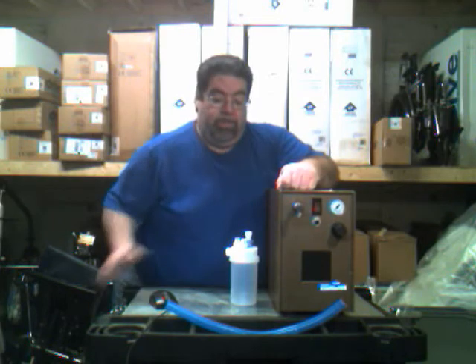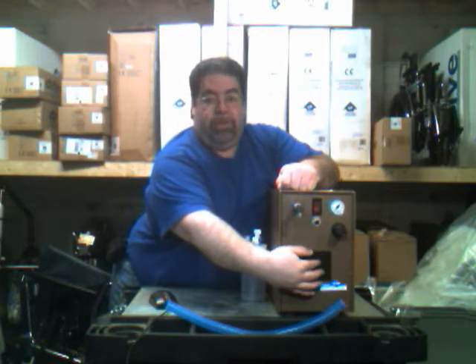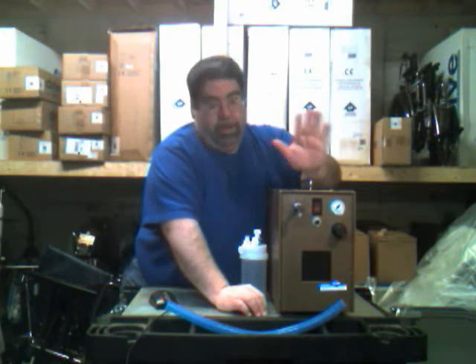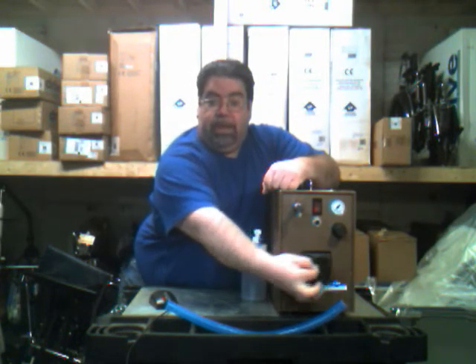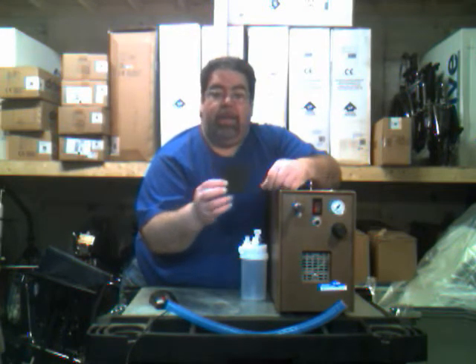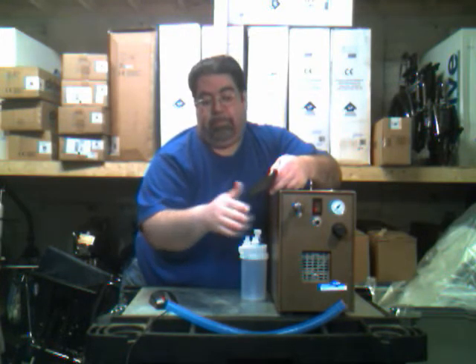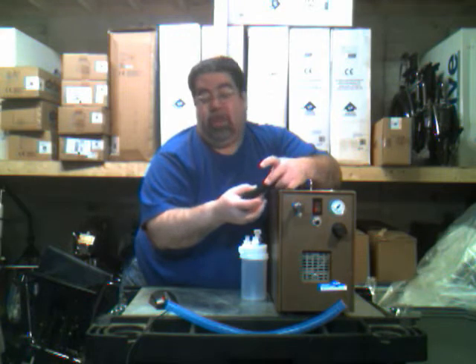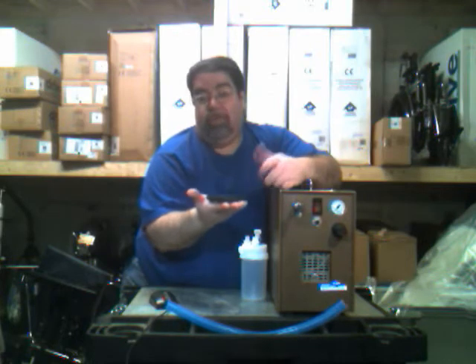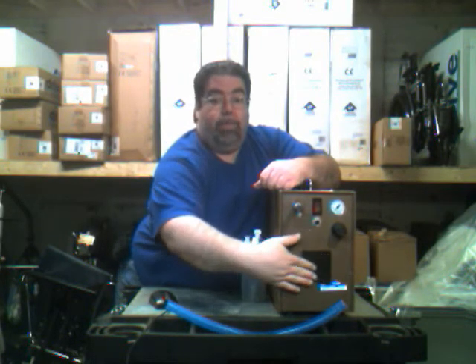The last thing on the front of the 50 PSI compressor is what's called a gross particle filter. This is to be cleaned once you see that it has dust on it or it's grey. It's very simple — you just pinch it and pull it out; it's practically like a sponge. You can take it to the sink, brush it off, wash it with mild soap and water, then place it on a couple of napkins until it's dried, and it fits right back in without any fuss.